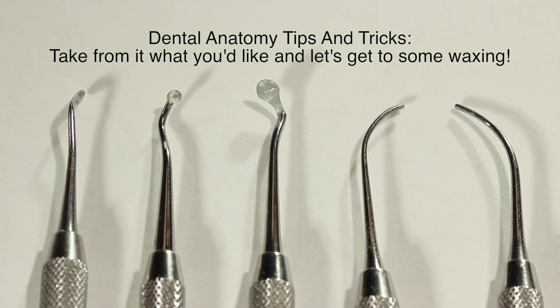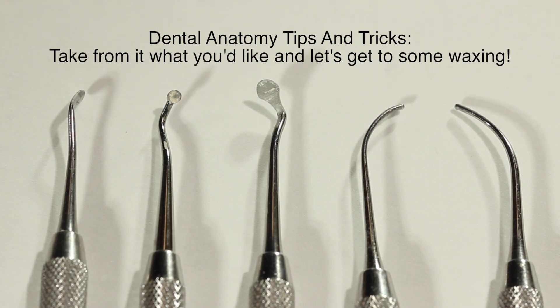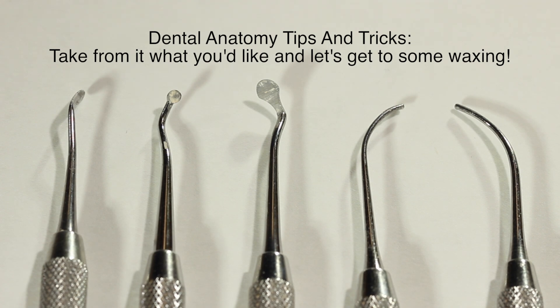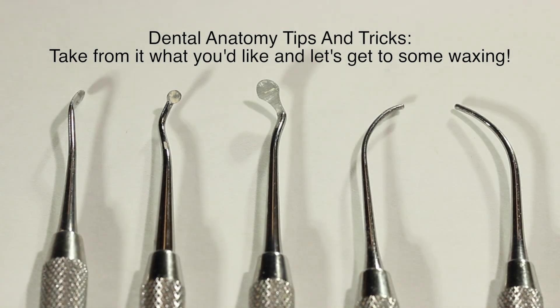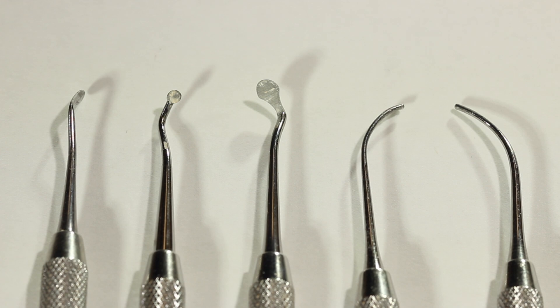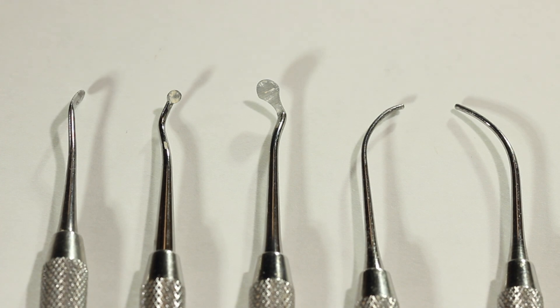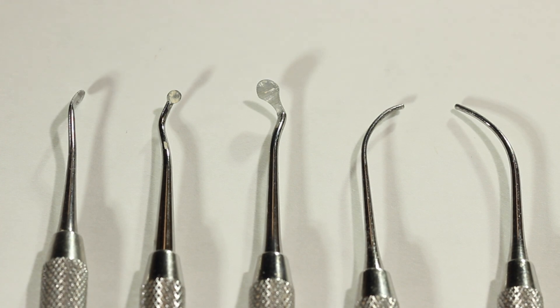Hello and welcome to Dental Anatomy Tips and Tricks video. In this video we'll be going over a little bit about the instruments that we use in dental anatomy and how we utilize them in our wax-ups of teeth.